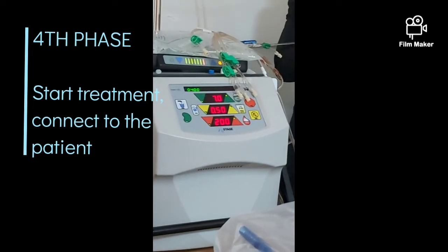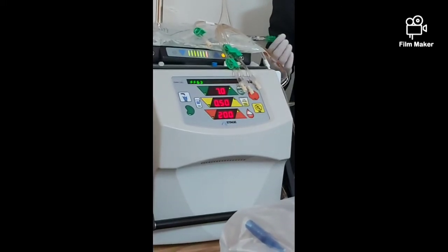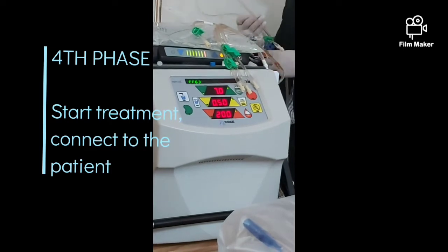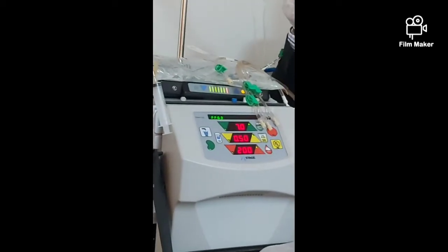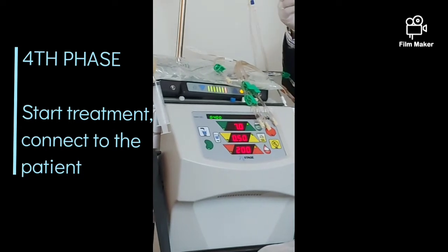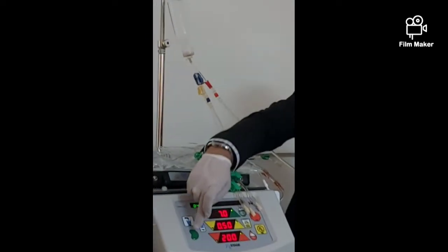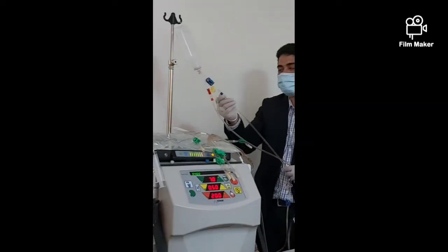The fourth connection is green — green connects to green, matching colors. Now when you are connecting to the patient, for example connecting venous and arterial — you can connect both together. For the closed system you need to connect both at once. For the open system, you can connect just the arterial, leave the venous open, and start it until you see blood coming here, then stop and connect the venous to the patient.